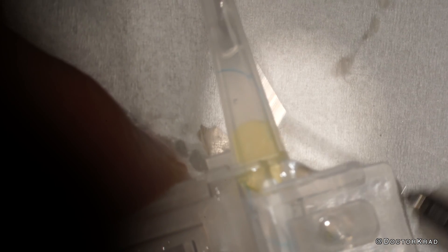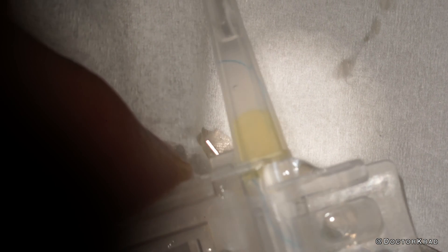So what do you think? Is it gonna work this time? Here we go, we'll find out. It looks like we left the trailing haptic behind — the leading haptic seems to be coming out fine. And there we go: another lens is shredded.